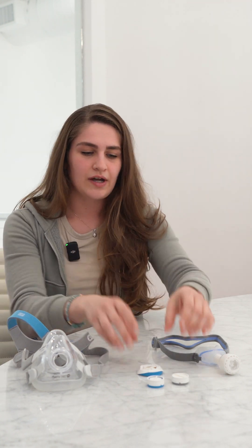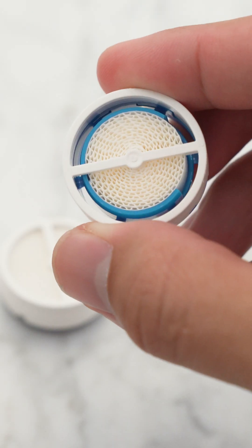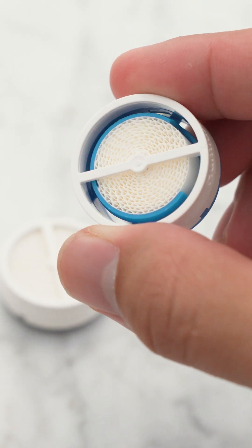The way these cartridges work is that they have tiny paper ridges in them. Those tiny paper ridges capture your exhaled moisture when you breathe out, creating moisture within the mask. So it's kind of like you're rebreathing your own humidification that you've made.